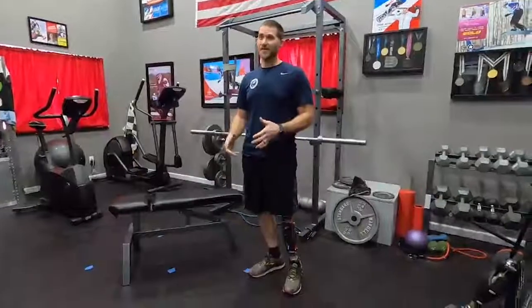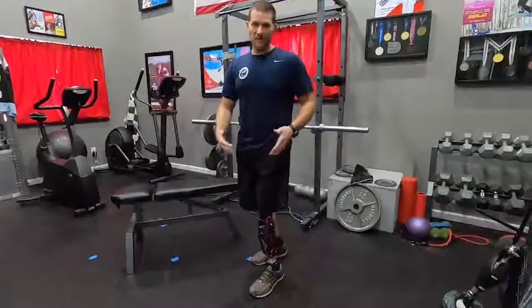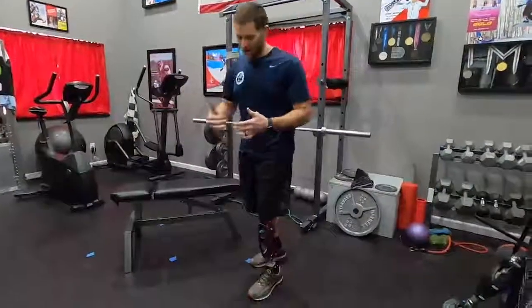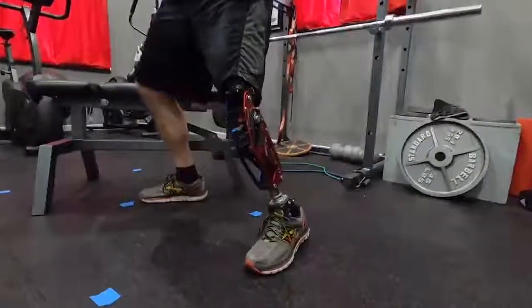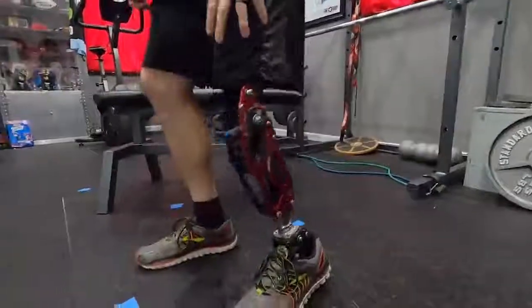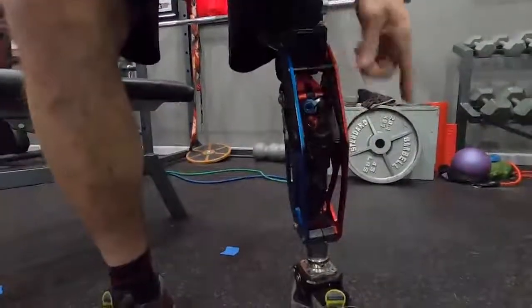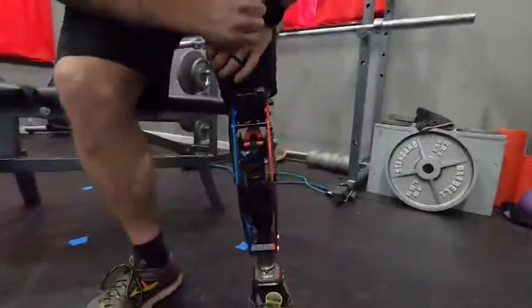One of the things that makes the Paralympics so cool is that most of us are relying on adaptive or specialized prosthetic equipment. For example, this moto knee is the one I use for all my sports and activities. You saw me on the balance board, jumping up and down — what does that do to help me be a better snowboard athlete? It allows me to stand in a snowboard stance, move up and down, and absorb impacts while jumping. The cool thing is I can adjust the air pressure in here, and I've got little clickers that make it stiffer or softer depending on course conditions, terrain type, or the specific sport. I'm kind of like a transformer — I can transform my leg into a couple different things.